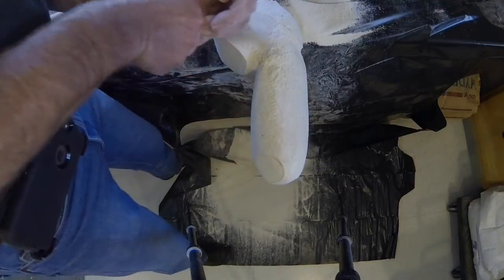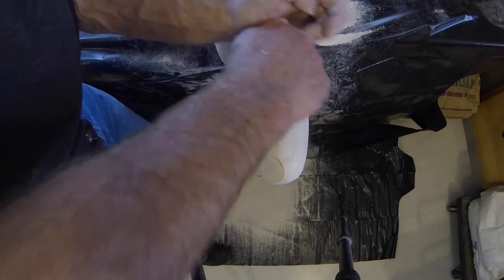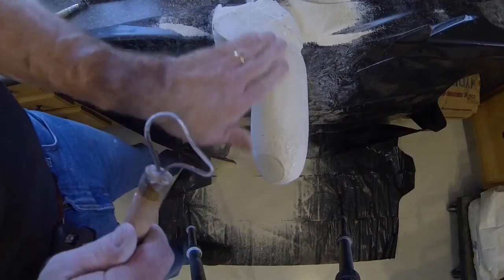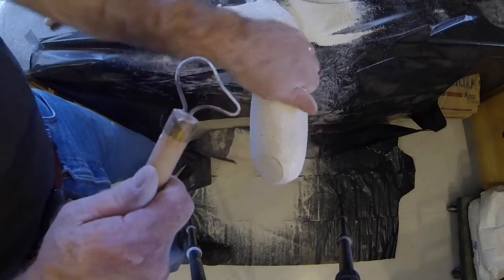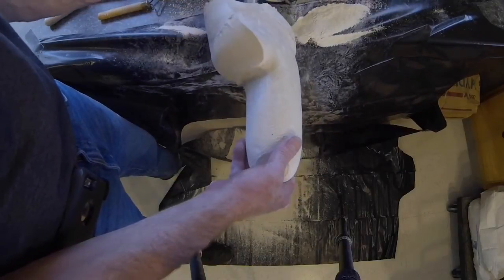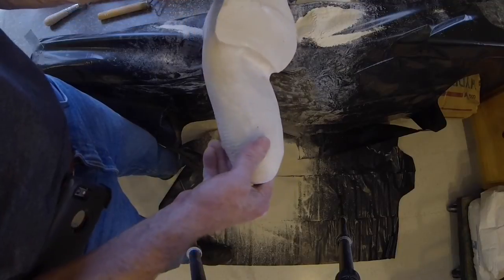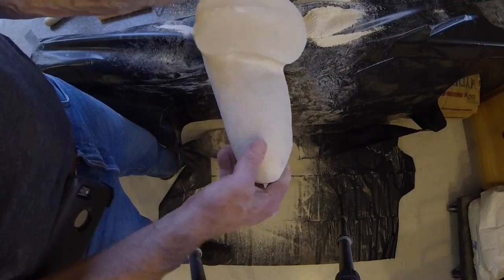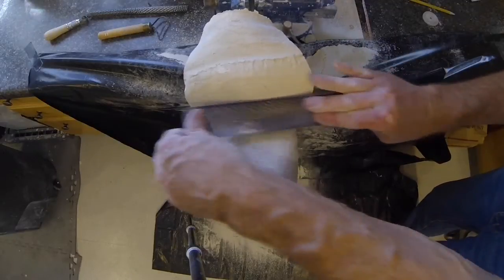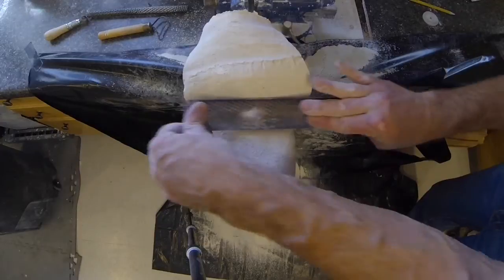Use the medial wall overhang to be about 3/8 of an inch wide to provide sufficient flaring.